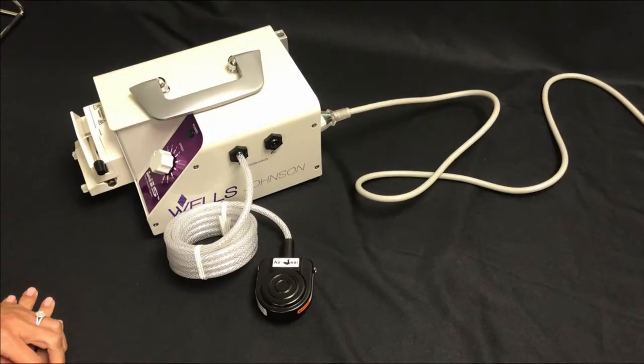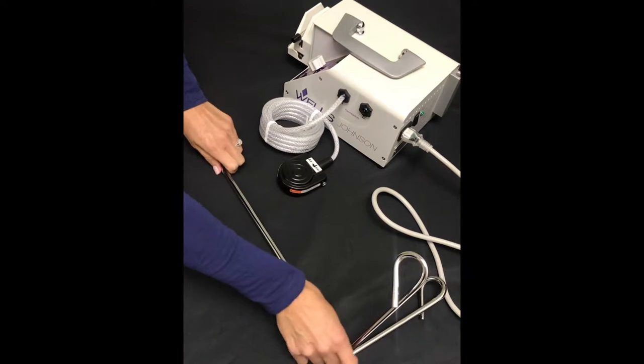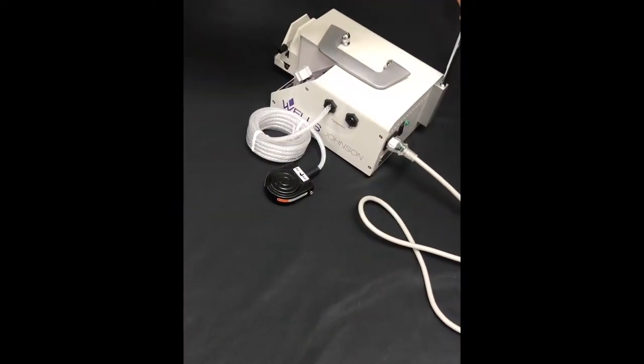Place the footswitch on the floor. The IV bag stand fits into the bracket located on the back of the pump.